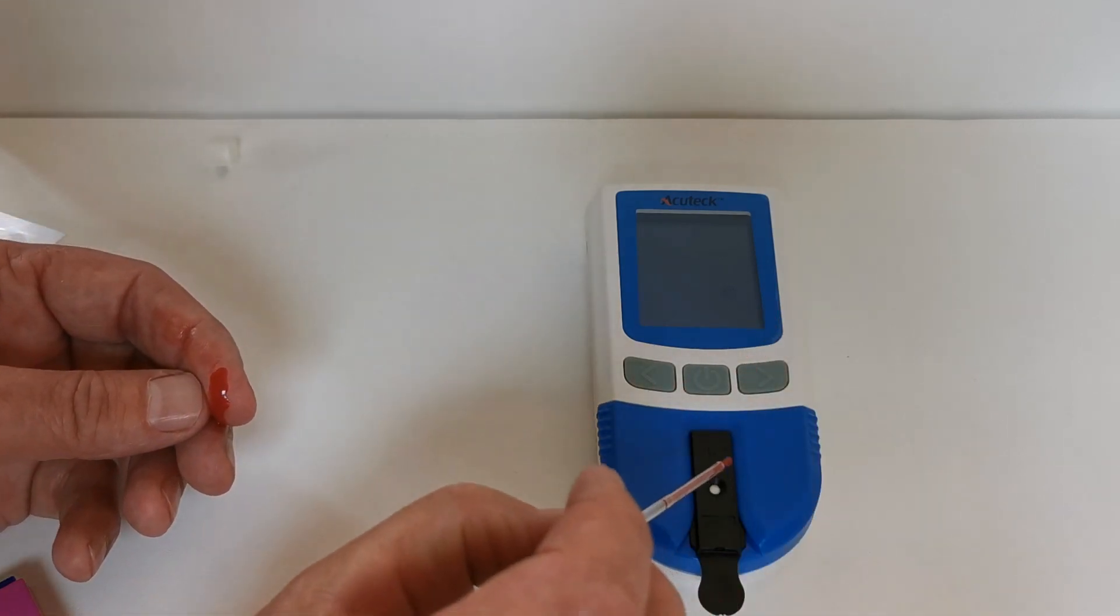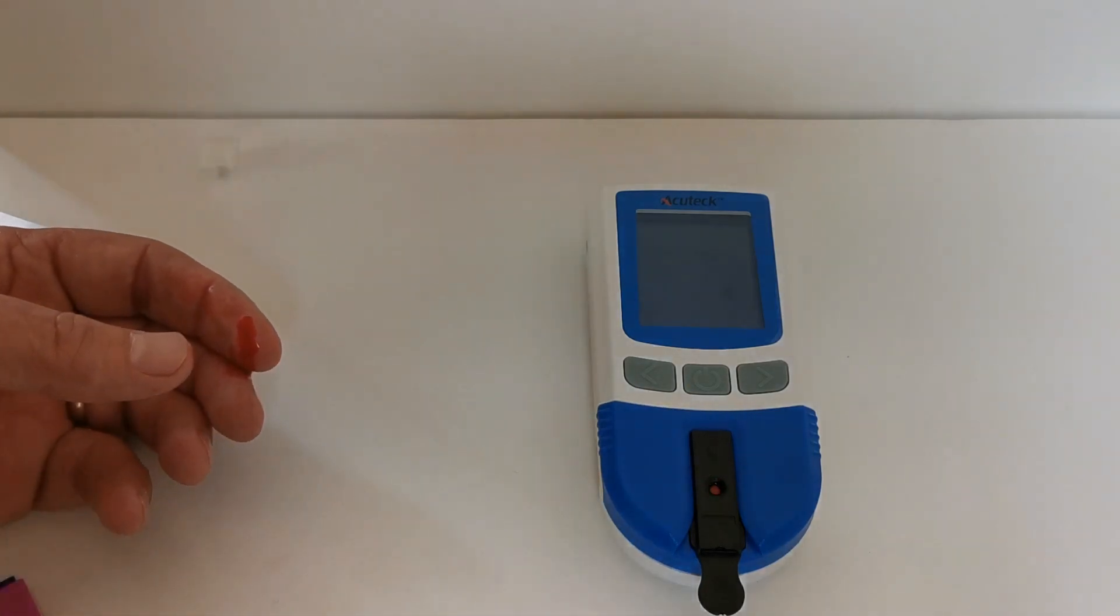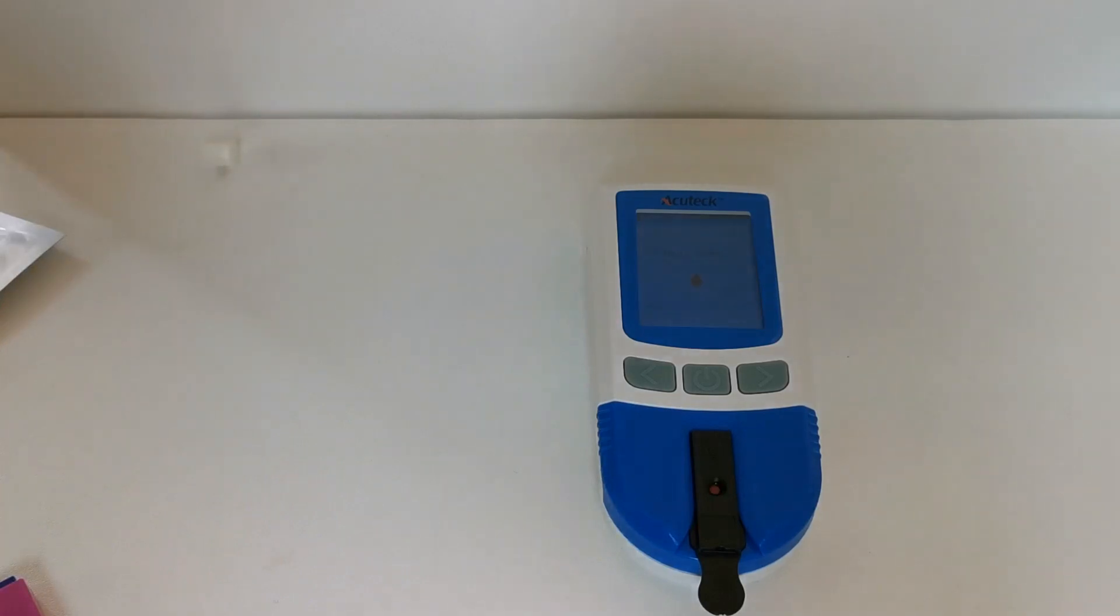You then wish to apply the sample by squeezing the pipette into the sample well. And there we go. That sample has been applied.